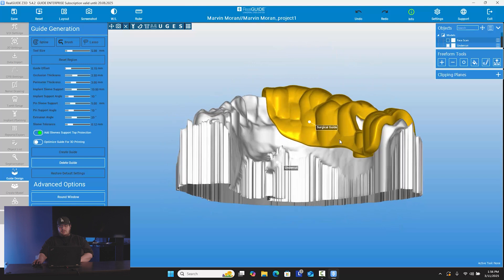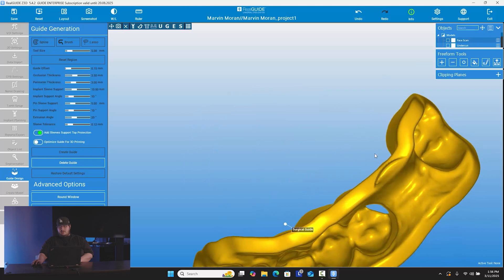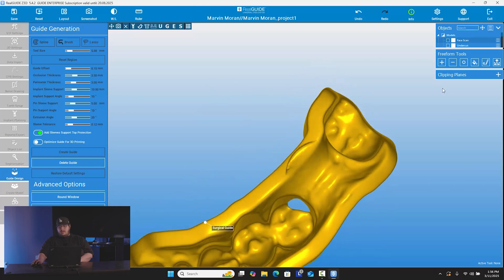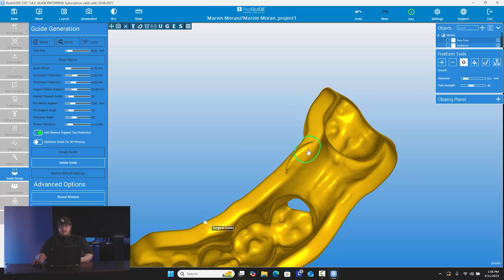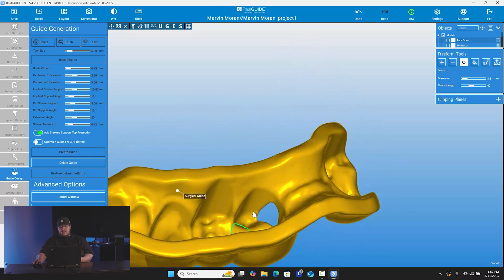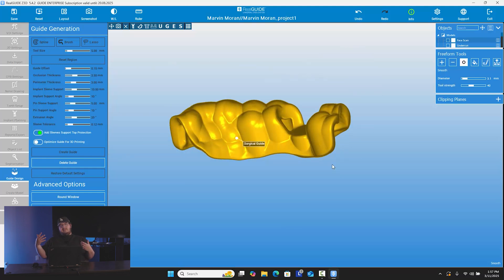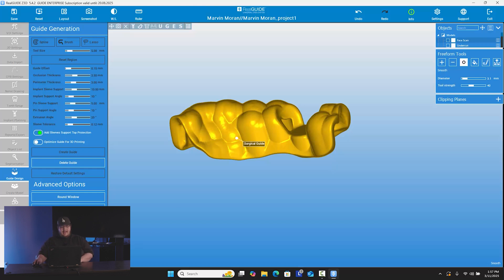I'll get rid of the undercut object, and as you see here there's kind of some extra material that gets made right here. If you want to get rid of that, you have what's called the free form tools. This is where you can actually smooth, remove, or add any material to whatever object you want. So for example, I'll press smooth, come over here — this green dot is a representation of what area I'm going to be smoothing out. I just want to smooth that little extra material away just like that, not touching the inside, just smoothing that out. Don't go too crazy — you don't want to alter how this guide is going to sit. But if you have any excess material, you can go ahead and just smooth it out real fast.